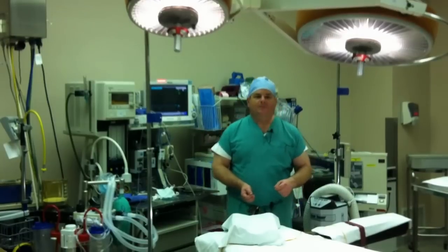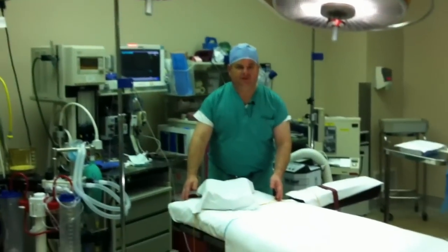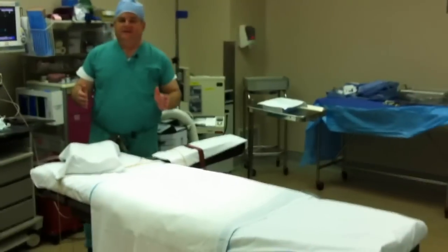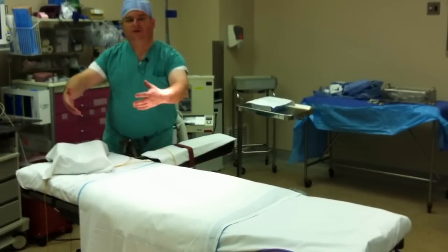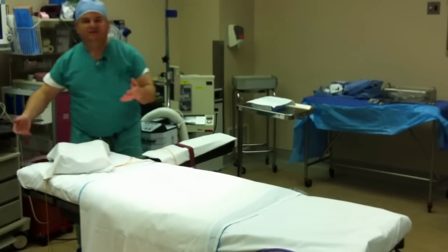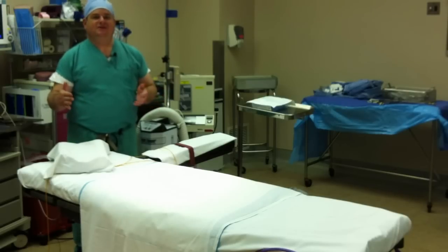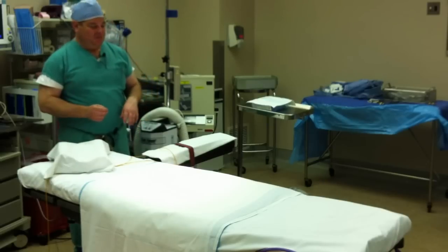Now let's look at the operating room table. This is the table that you're going to be lying on during the surgery. As you can see, it's very thin, and that's on purpose. The reason we have a very thin table is that we have to stand up next to the table and lean over to operate. If the table were wide, more like a regular bed, it'd be very difficult to get to the areas we need to operate safely. It is a little scary when you get on it because you realize you're on this tiny little table and you're afraid you're going to fall off — but don't worry, we won't let you fall off and we'll get you positioned properly.